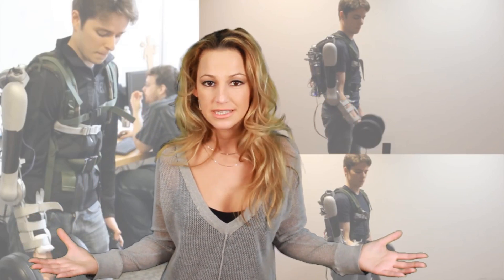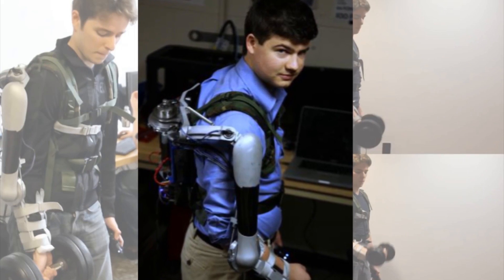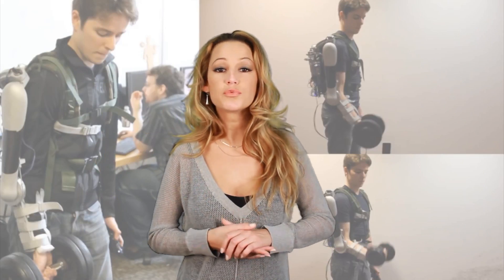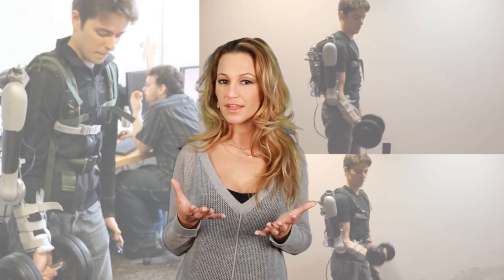That would be great for moving day — maybe we'll be able to rent one. This Titan Arm looks and sounds like it's part of a superhero costume, but it's designed for the average person. It's perfect for those who may be in need of rehabilitation or just a little extra help lifting something of extra weight.